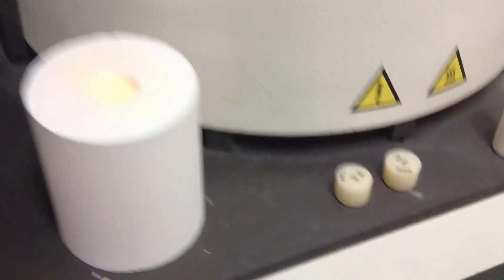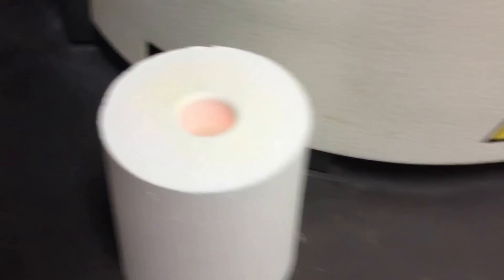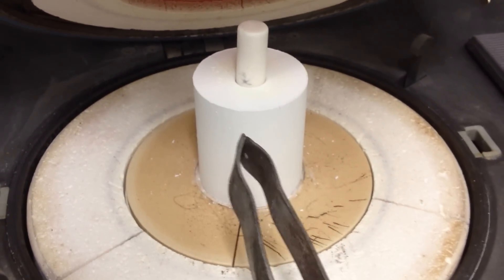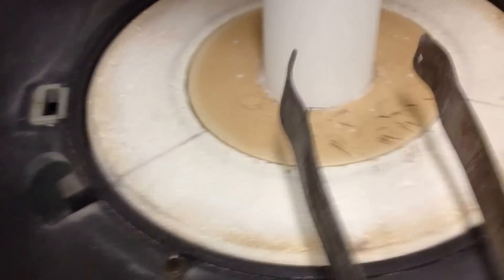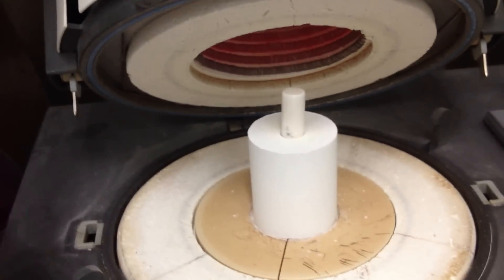I'll load it all up and show you guys what I do. I'll get the mold out — that's very hot. Now I'll load up my ceramic ingots. These particular ones are lithium disilicate, which is a synthetic glass, and this plunger is an aluminium oxide rod. Open the furnace. That's the mold I made with the wax pattern inside. I put it in a furnace which burnt out the wax pattern, leaving a vacant cavity inside the mold, which is investment material — a phosphate bonded investment. Now I've loaded the glass pellets on top of that, and the plunger on top of that.